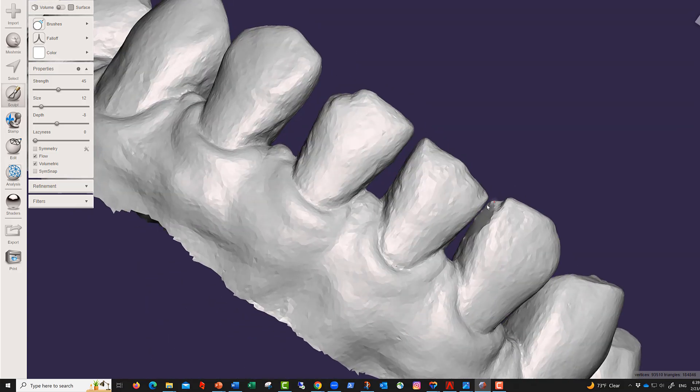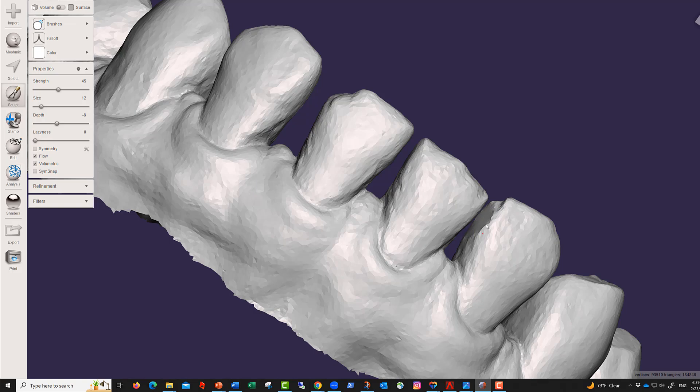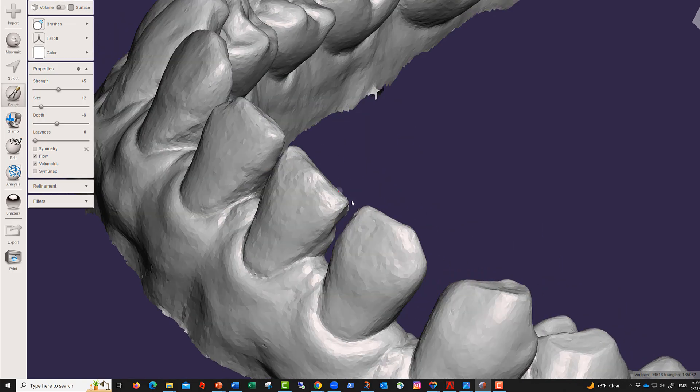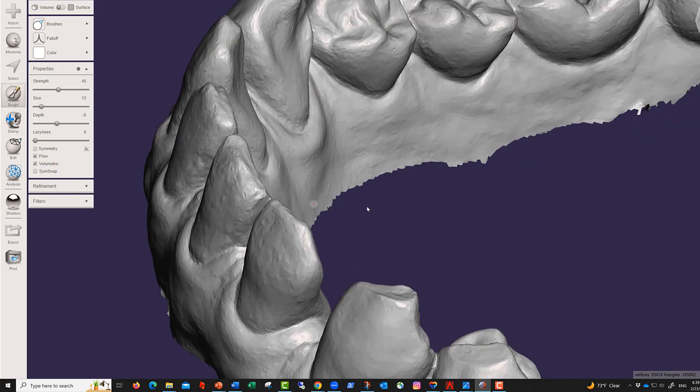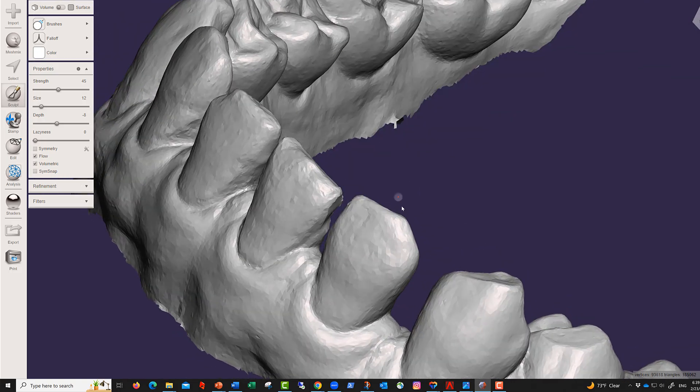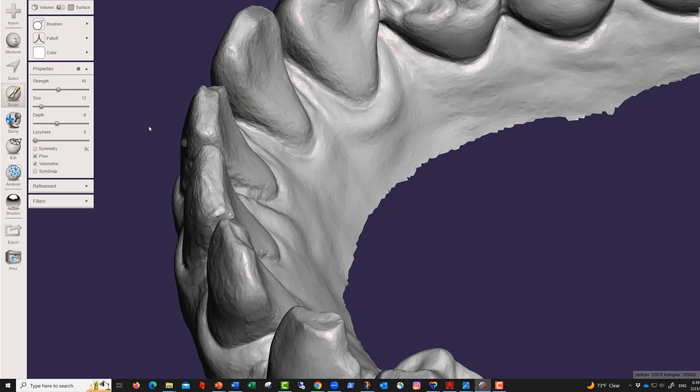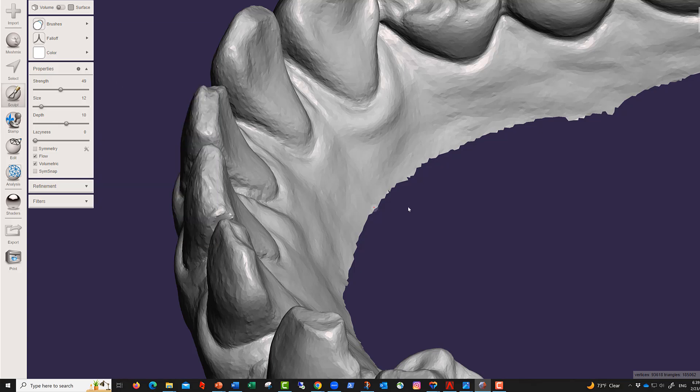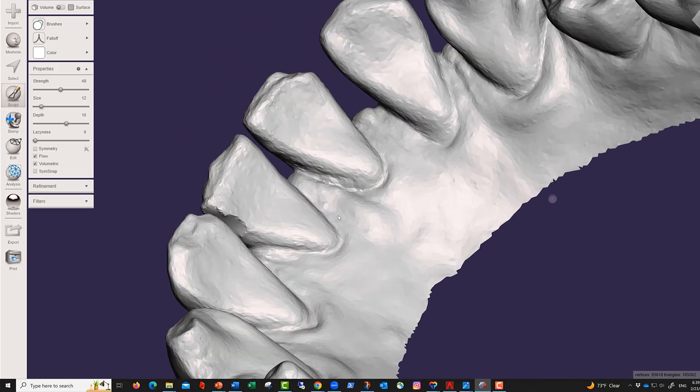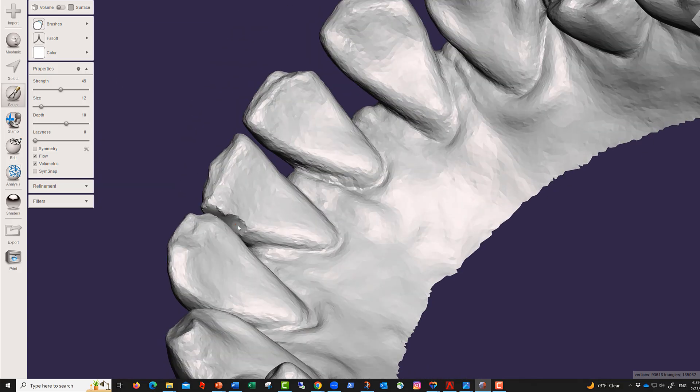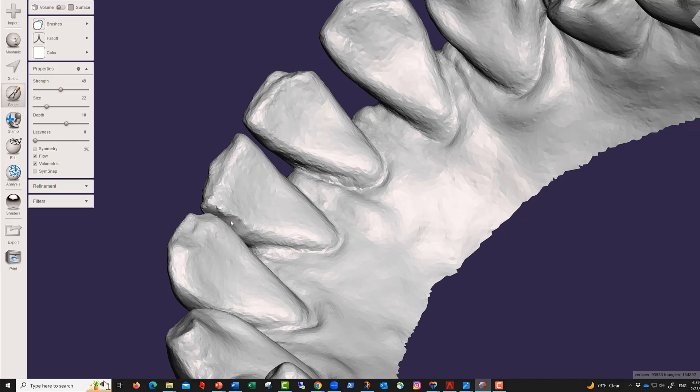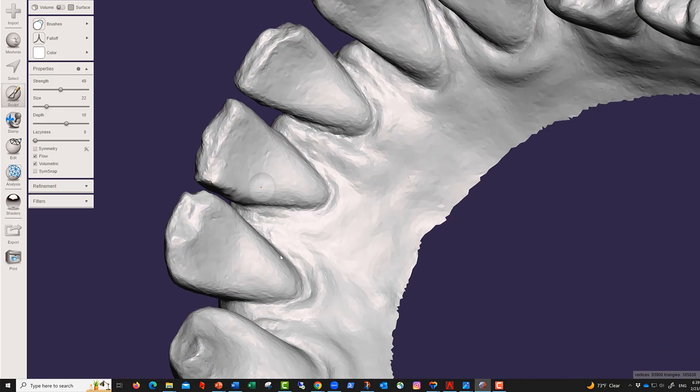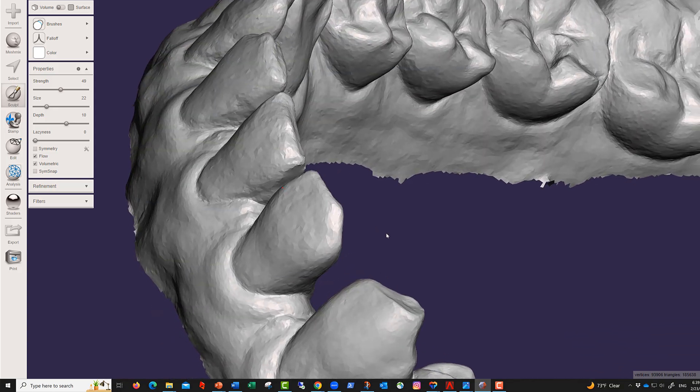And this one is good. Do not touch the incisal edges. And for this one, I'm going to take another brush, and I will inflate this one slightly. I just want to make sure that we have no issues.